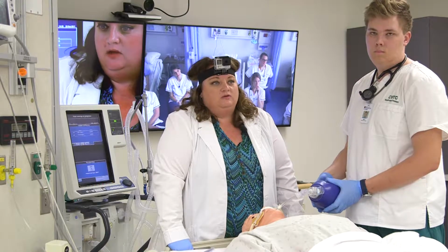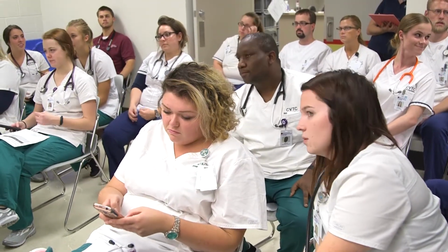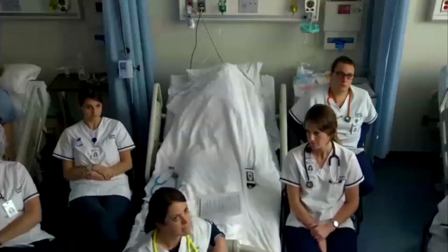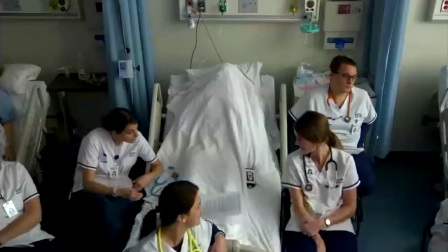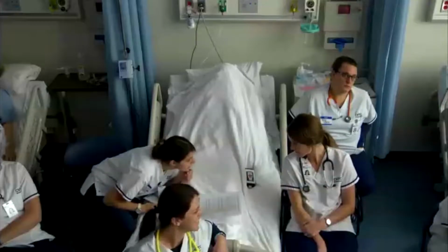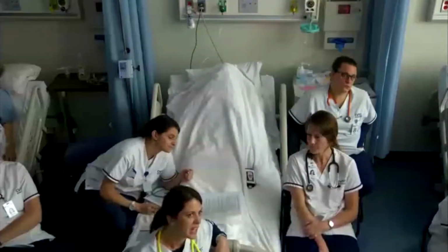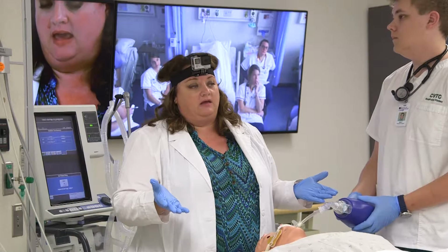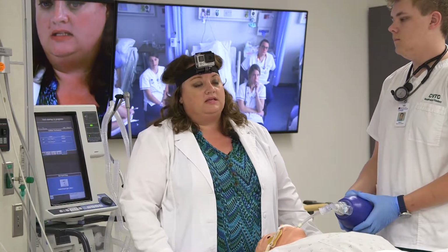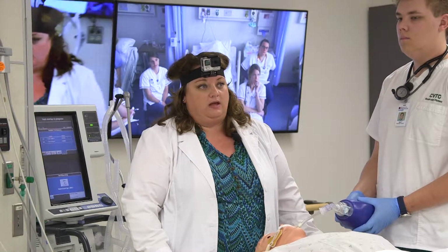There's a formula we use as respiratory therapists. 78.18. So he's about 80 kilograms of ideal body weight. The reason we use ideal body weight when we set up someone on a ventilator is because it doesn't matter how much mass they have around them. It's all based off of how tall they are, is how big their lungs are. And he's a male, so it was based off him being a male and how tall he is. We normally set them up at about 6 to 8 milliliters per kilogram of ideal body weight.